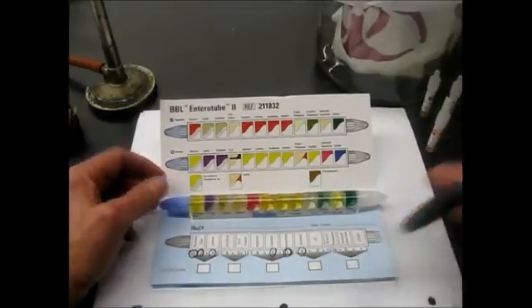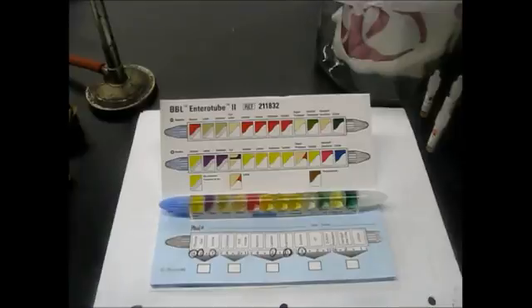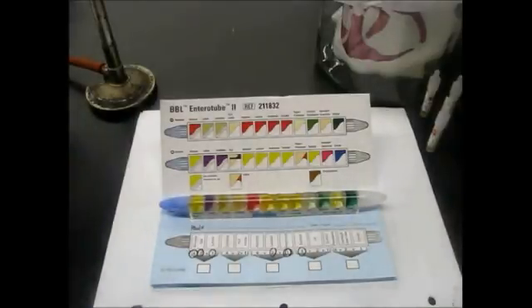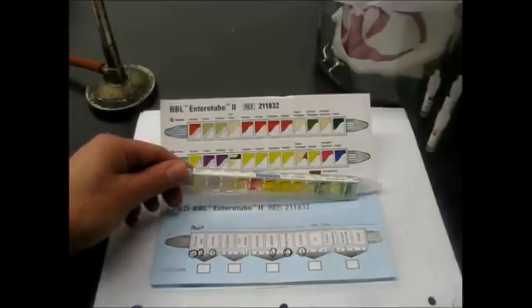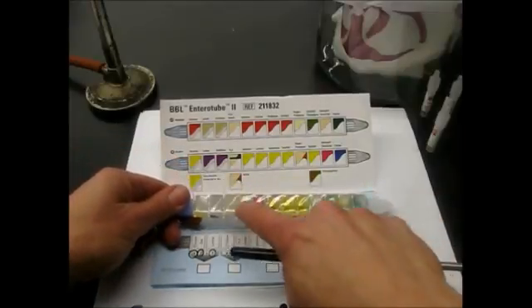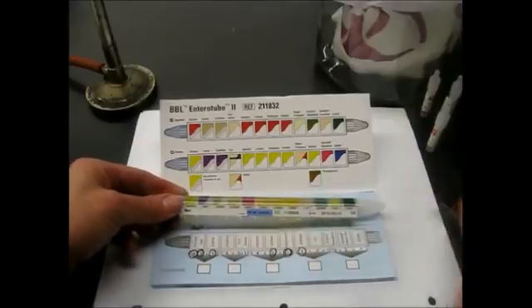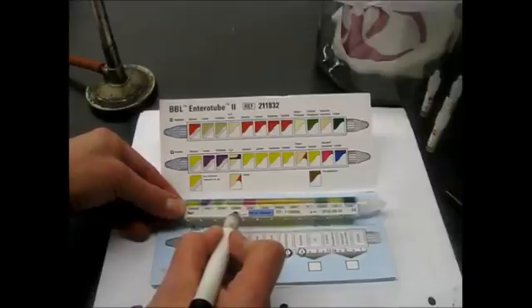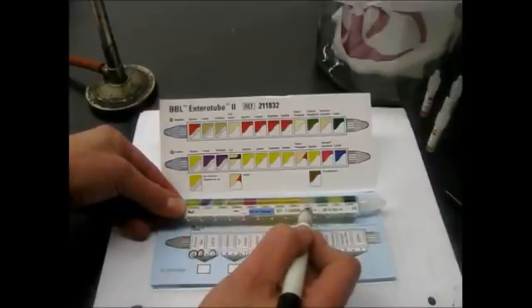Now the next part of this, after you get all of those initial results down on your results pad, you're going to go ahead and add the reagents for the indole test and for the Voges-Proskauer test. In order to do that, we have to burn a hole in this plastic covering in the two chambers for those tests. So the indole test is this one here, and the VP test is this one over here.